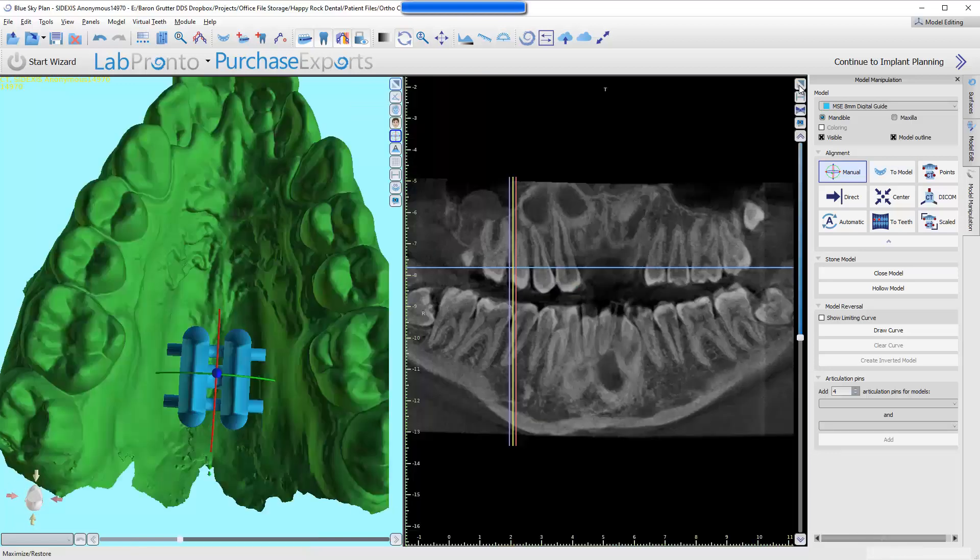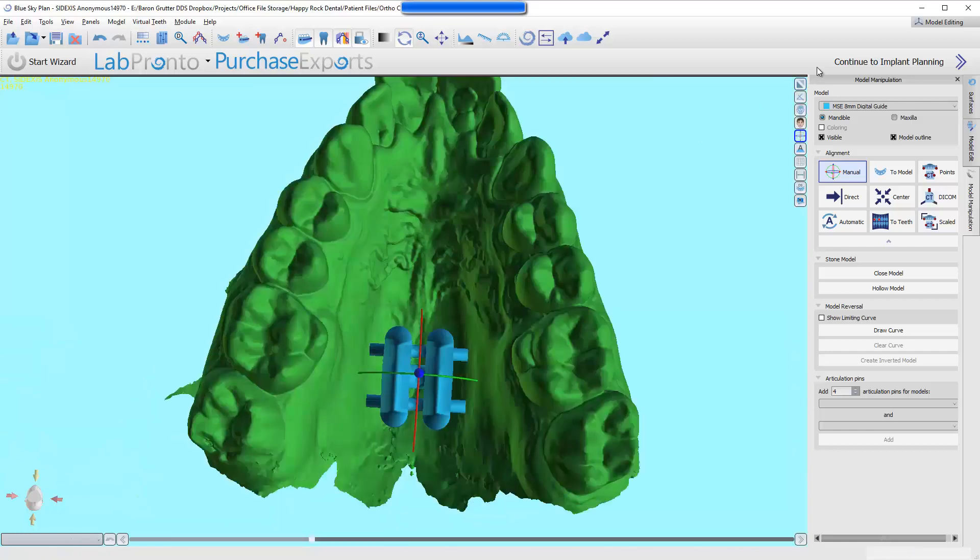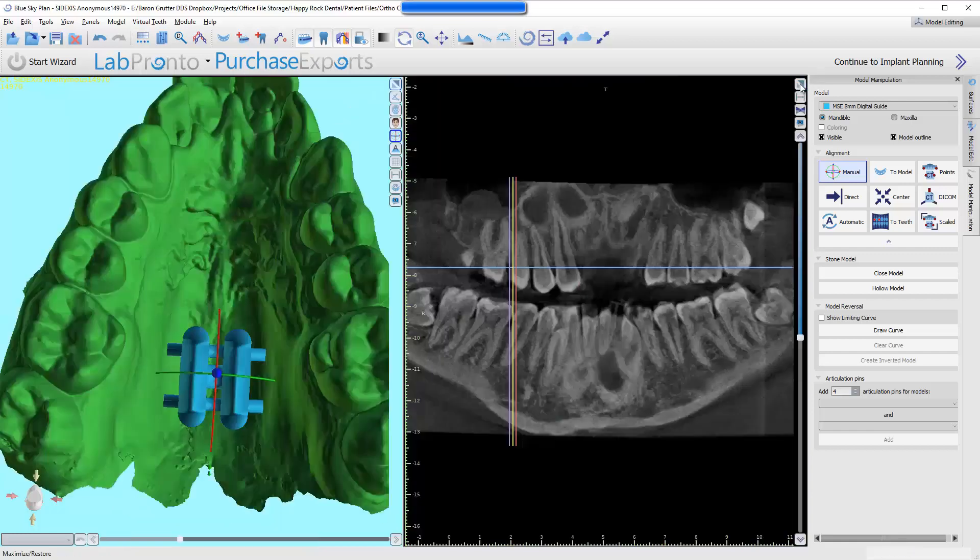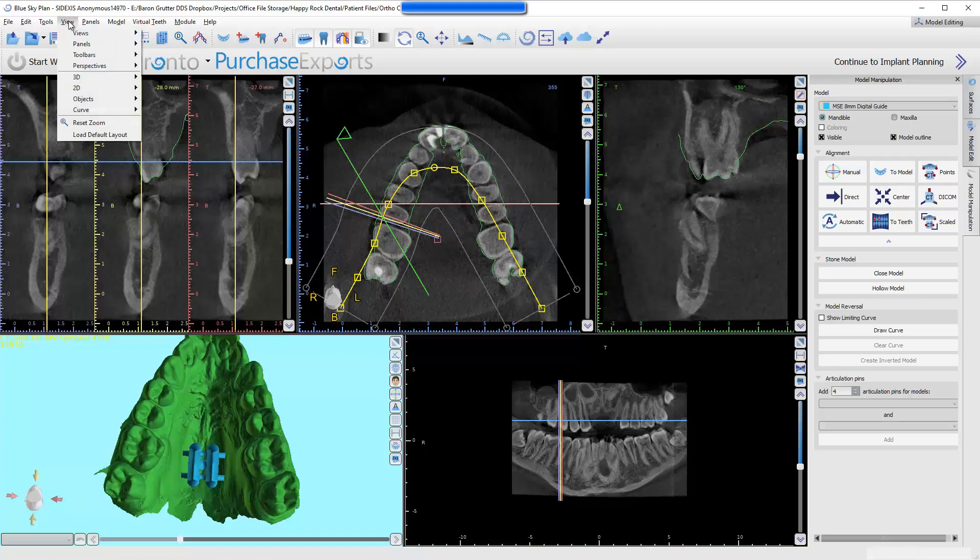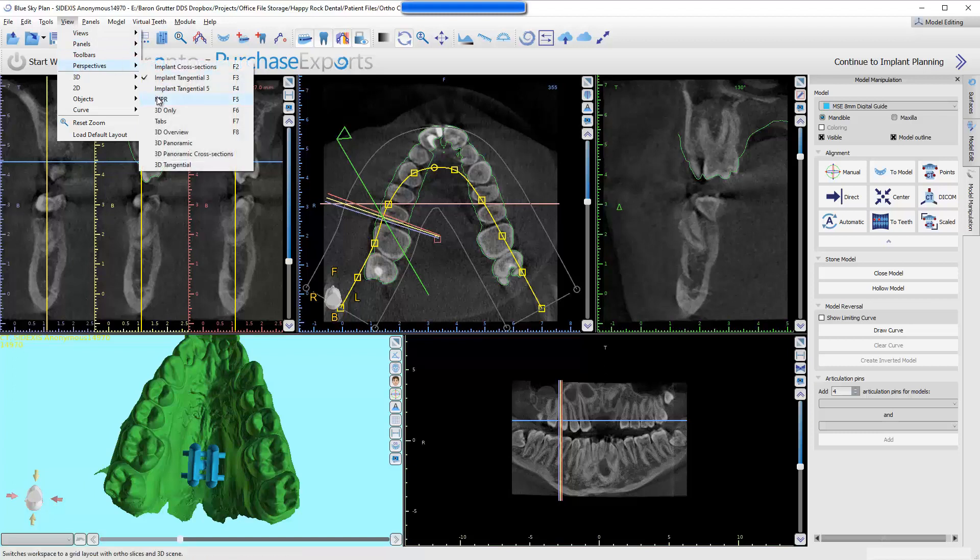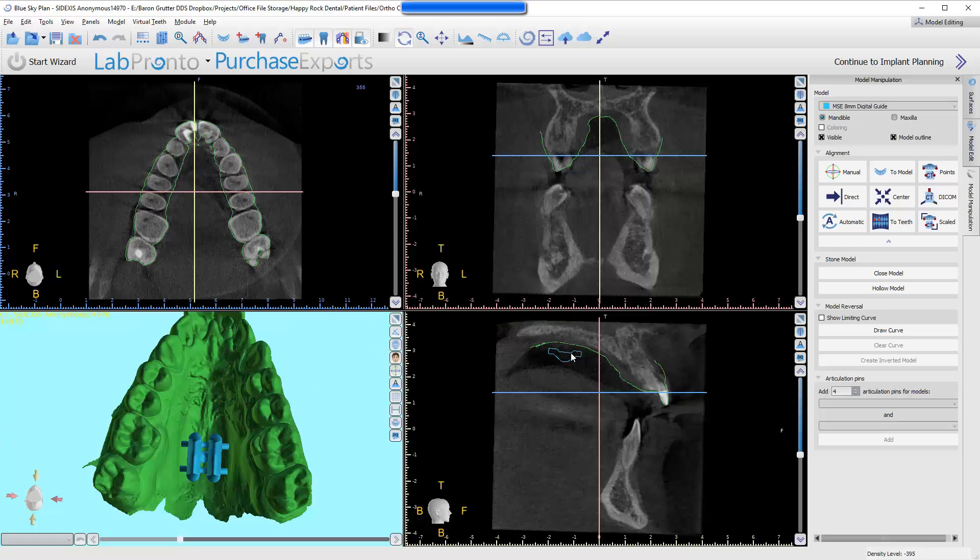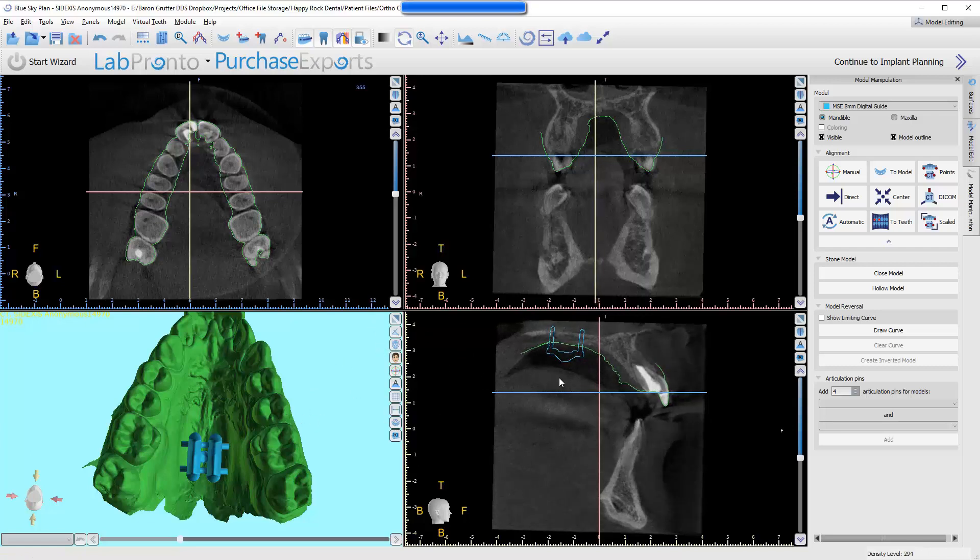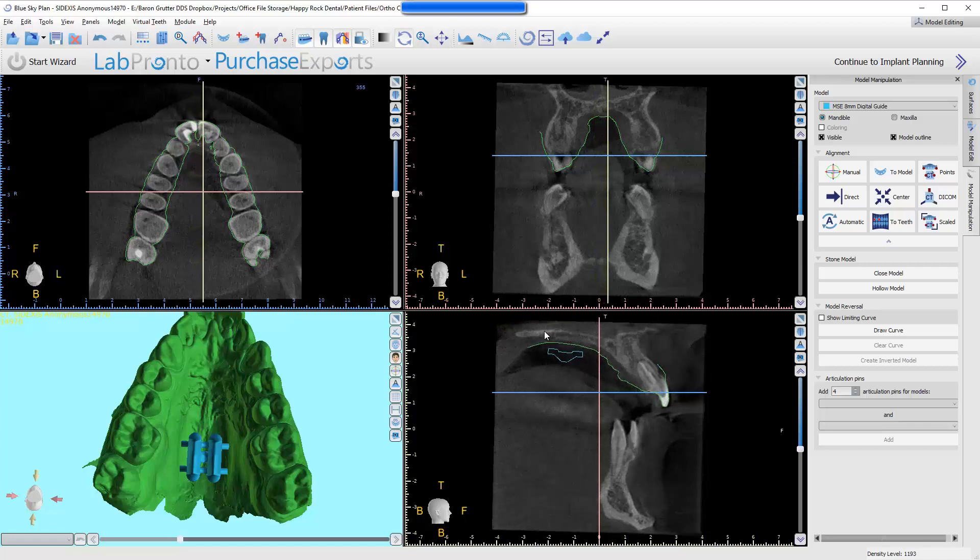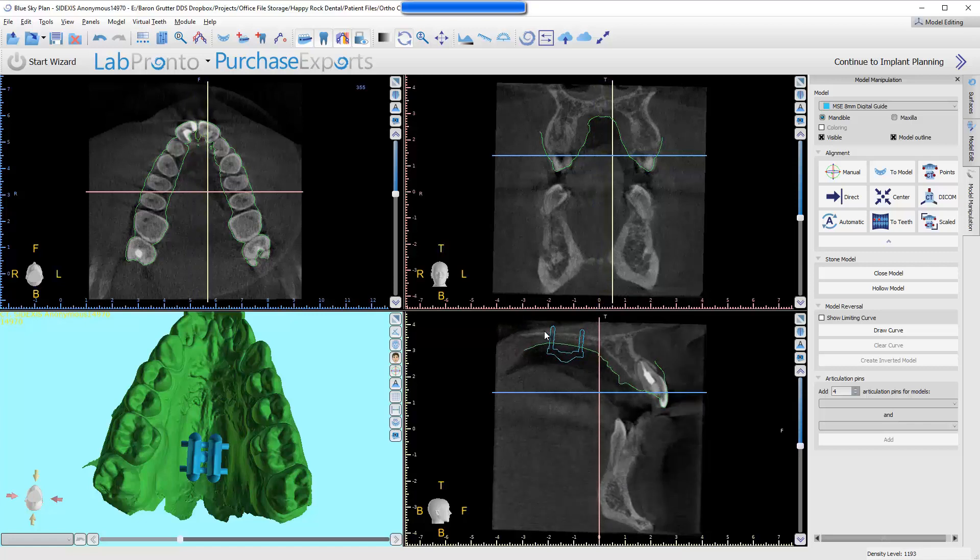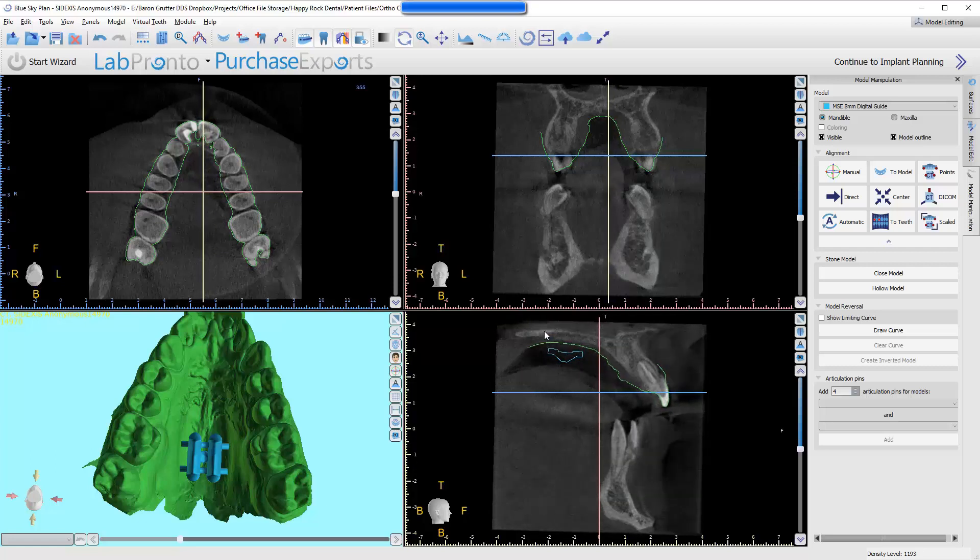Now, let's minimize this view. There's little triangles right here. It allows us to maximize this window. So, now we can come over here, and I'm going to go to Views, Perspectives, MPR. I'm going to change our layout. This is the traditional CT layout. I don't like this from implant planning, but from an ortho perspective, this is pretty darn good, actually. Now I can see that these are engaging palate. He's got a fairly long palate, meaning it goes fairly far posteriorly, and so we are engaging bone, in fact. It's pretty thin, but the palate always is.